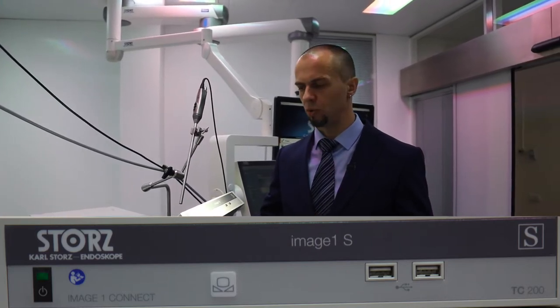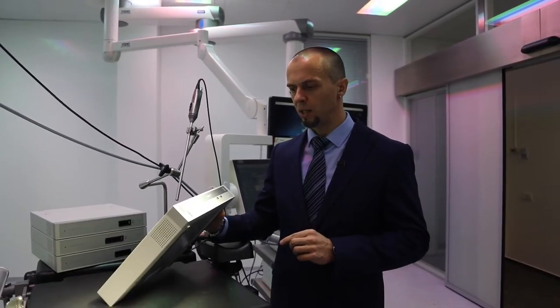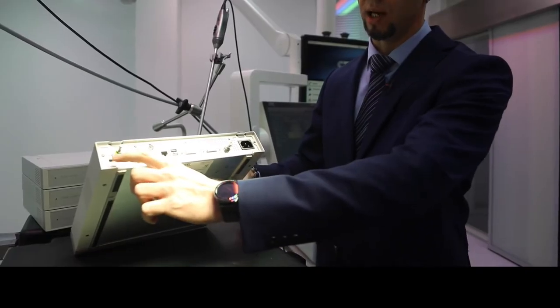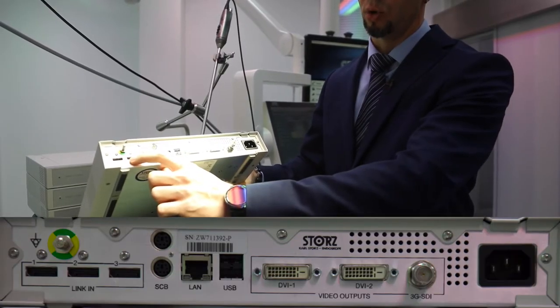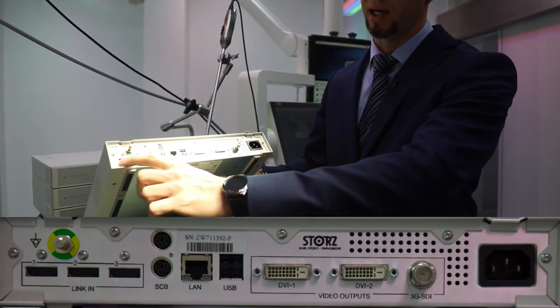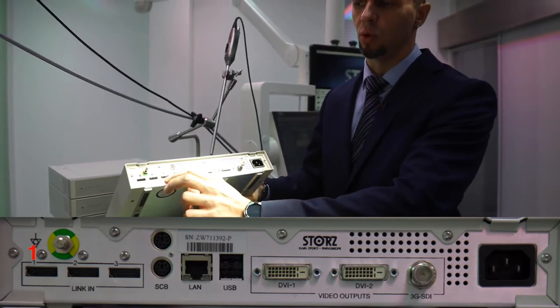Никогда не забываем RU, иначе мы забудем нашу клавиатуру русифицированную. Идут у нас линк-модули. Модуль Connect первого поколения оснащён тремя линк-модулями.